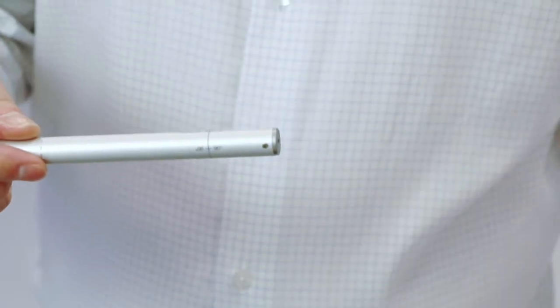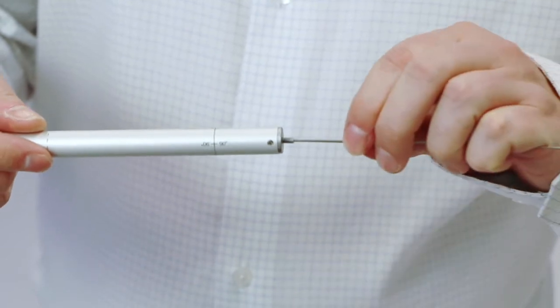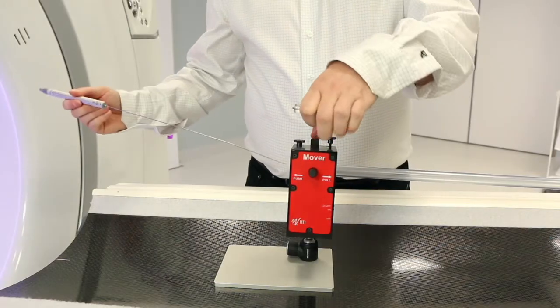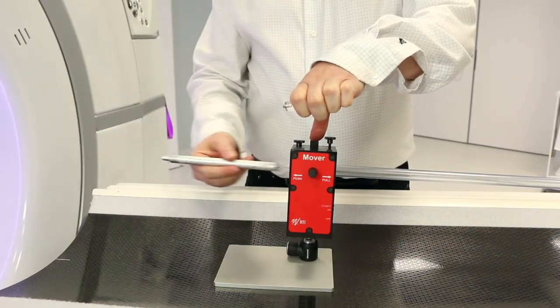Remove the plastic top from the CT dose profiler and attach the wire. Push down the release button and push the wire into the mover.